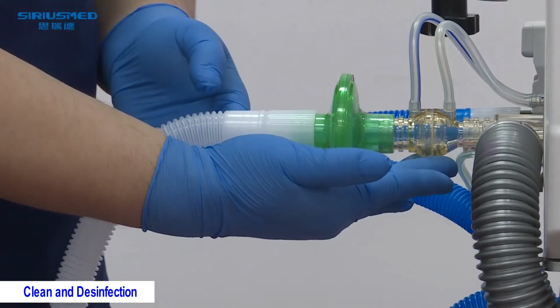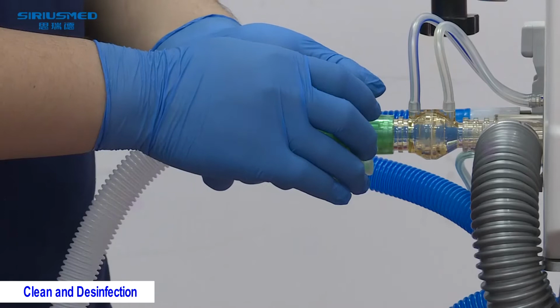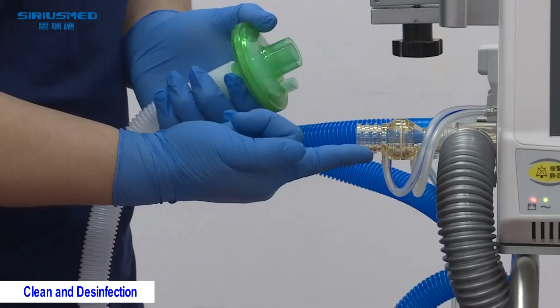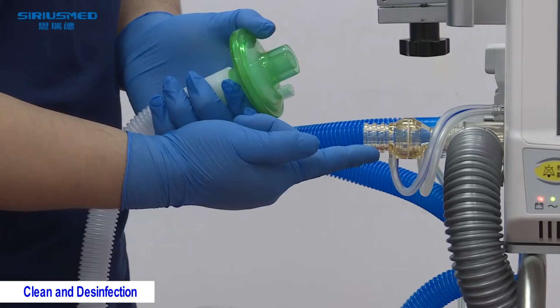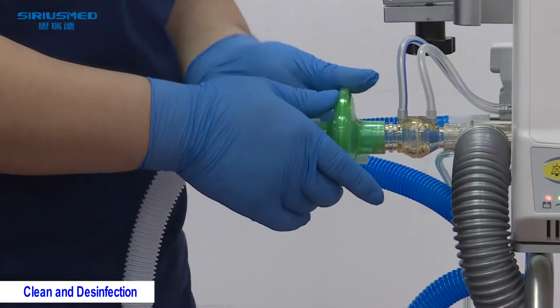Alright, now we're going to reintroduce the notes for daily use. First, the sampling tube of the flow sensor. We need to keep it upside. If you turn it to the downside, there will be some water in it, so it will influence the sensor. It's the wrong connection. Please make sure it's upside.